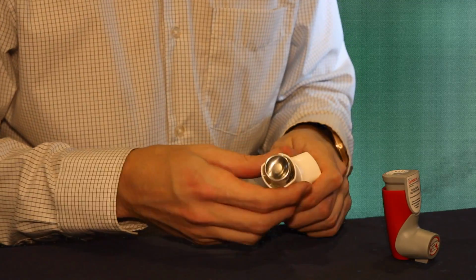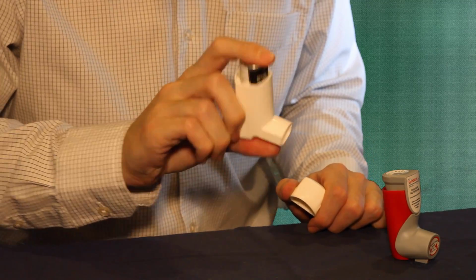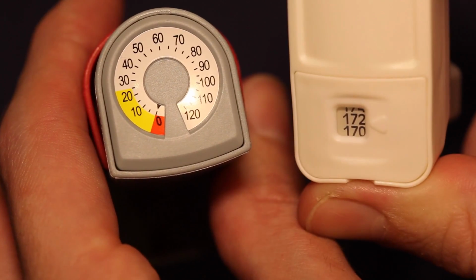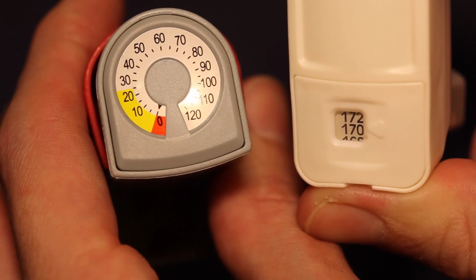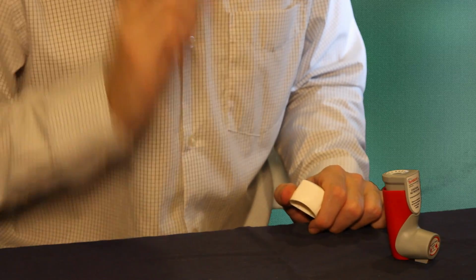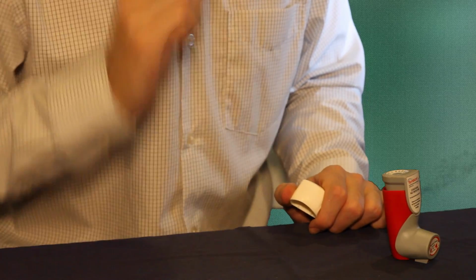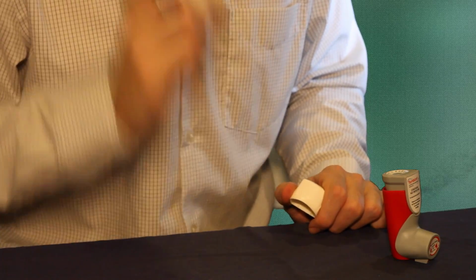First, you shake the inhaler for 5 seconds. Point the nozzle into the air away from you and press down to actuate the inhaler. Some inhalers have spray counters on them. The counter will show dots instead of numbers when it isn't primed, so keep shaking and spraying until a number appears. If there is no counter, or you're priming because you dropped the inhaler, do it 4 times.